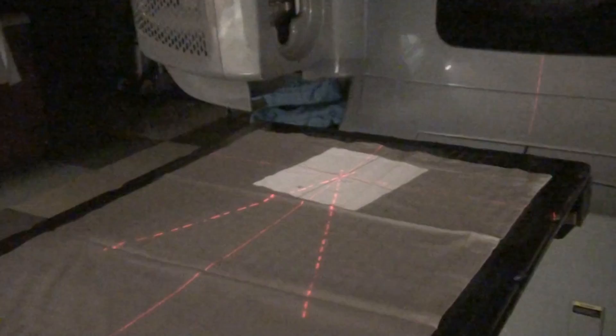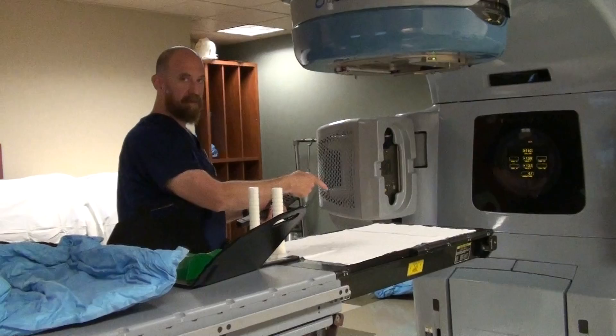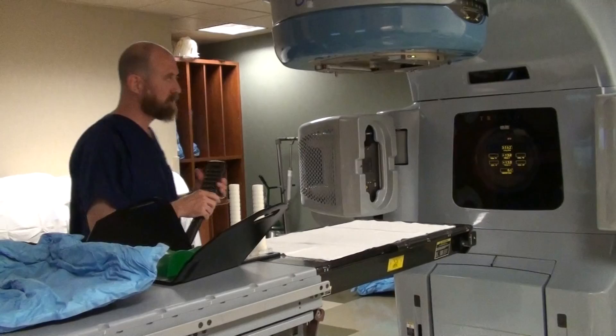Which brings us to the lasers. We have lasers in the treatment room that allow us to line the patient up. You have lasers on each side of the room, a sagittal that splits the patient in half, an overhead that's shining at the top of the gantry, and back pointer lasers that shine from below toward the back of the patient. Generally speaking, you have five sets of lasers. We'll go over those more at a later date.